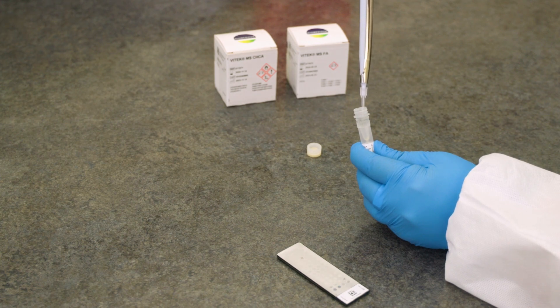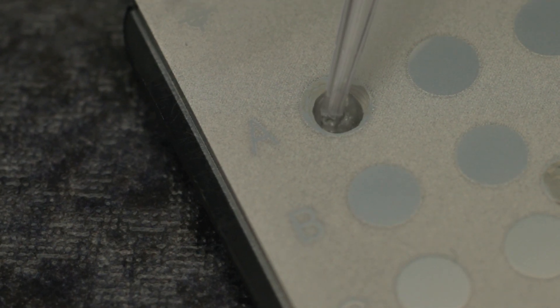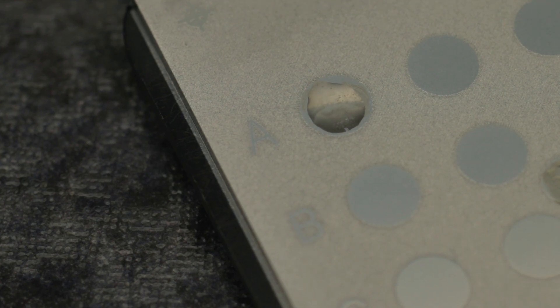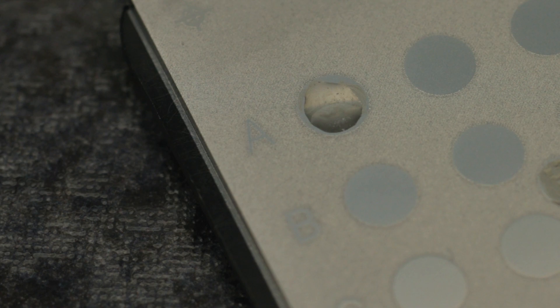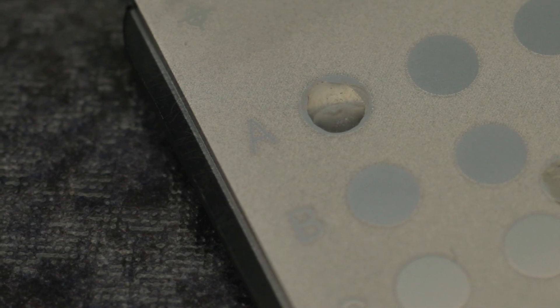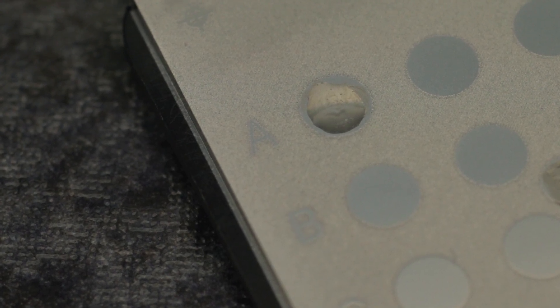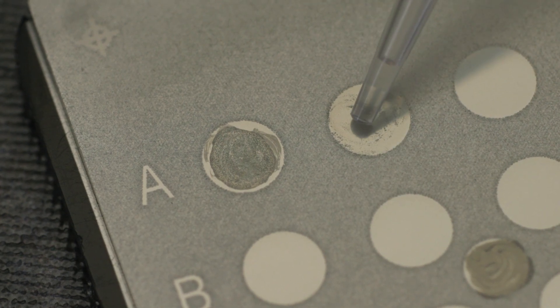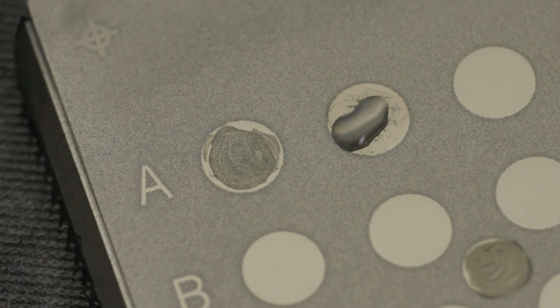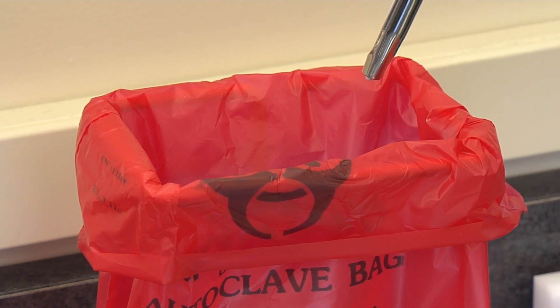Open the Vitek MS CHCA matrix vial; it is not necessary to warm the matrix to room temperature. Immediately after spreading inoculum, add 1 microliter of clear matrix to the center of the spot. Do not allow the sample to dry before adding the matrix. No more than 2 spots should be prepared before matrix is added to ensure the sample remains moist. If isolates are tested singly, matrix should be added as each spot is prepared. If tested in duplicate, matrix can be added after both spots are prepared. Always use a new pipette tip every time the matrix vial is entered.